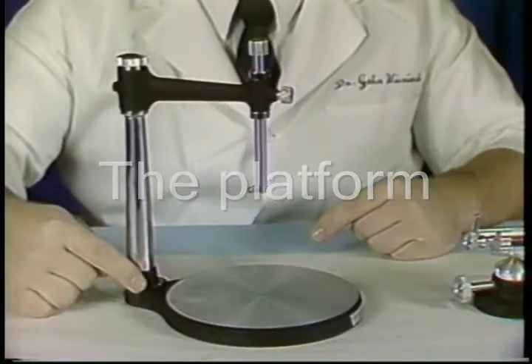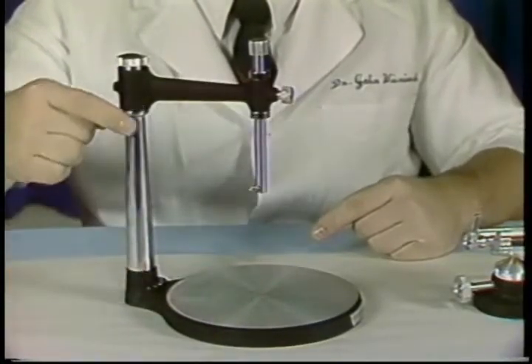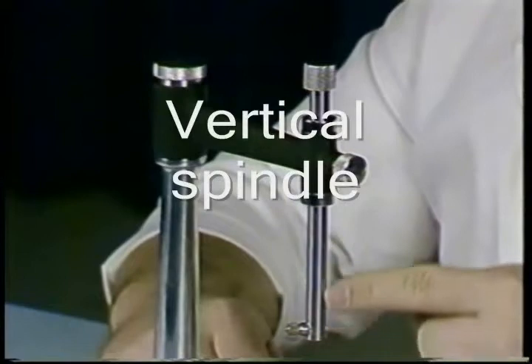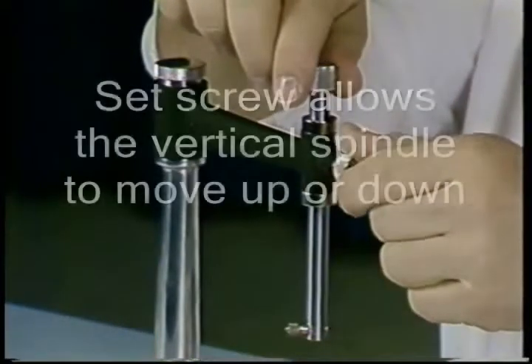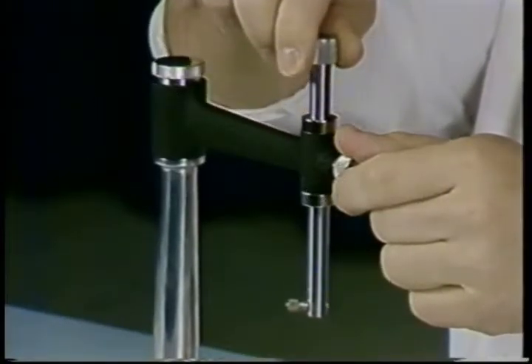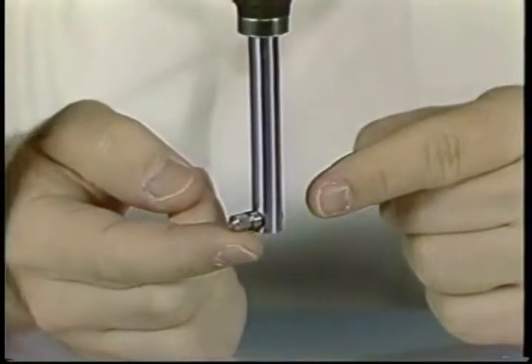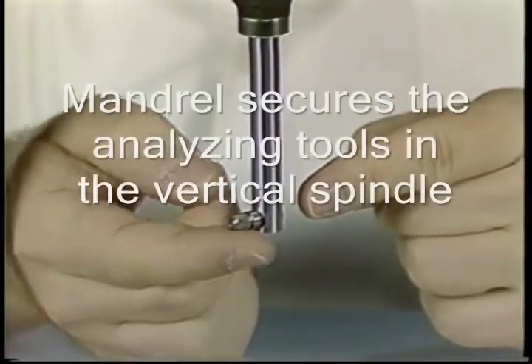The platform, the vertical arm, the horizontal arm, the vertical spindle. A set screw allows the vertical spindle to move up and down. A small mandrel allows the survey tools to be secured within the vertical spindle.